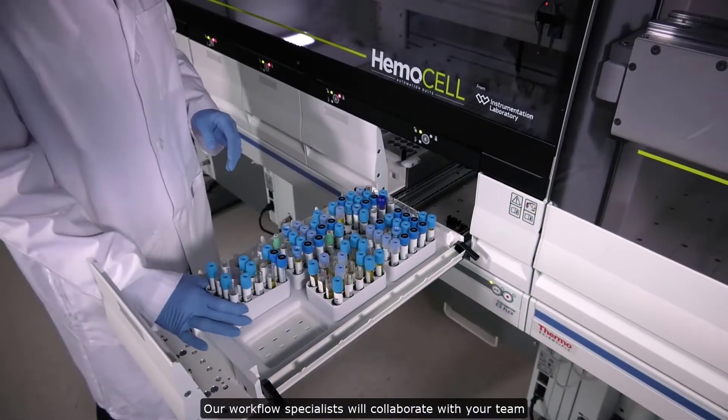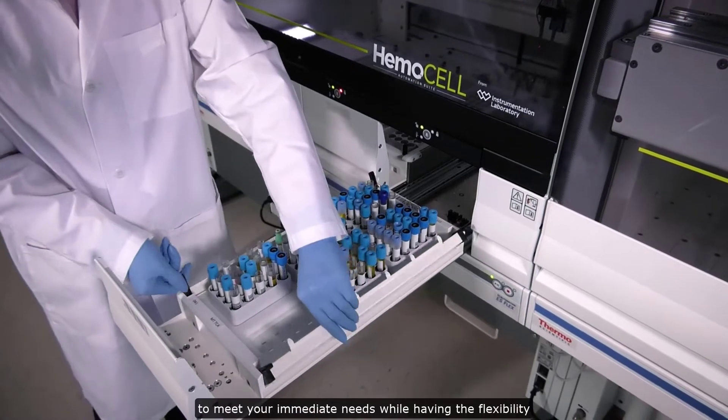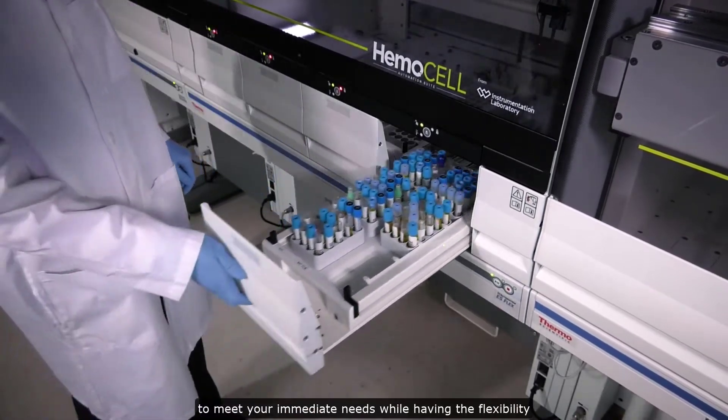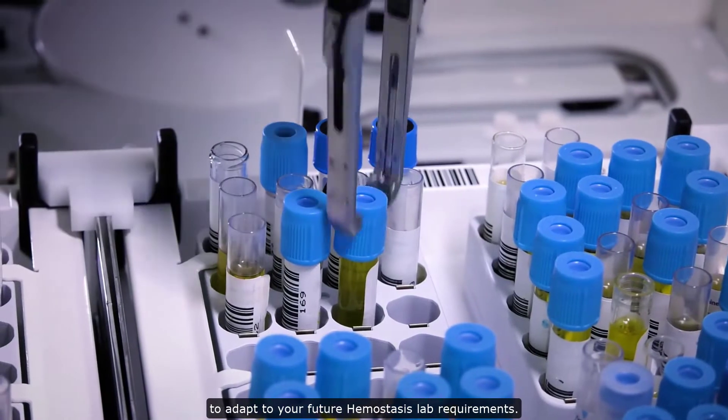Our workflow specialists will collaborate with your team to meet your immediate needs, while having the flexibility to adapt to your future hemostasis lab requirements.